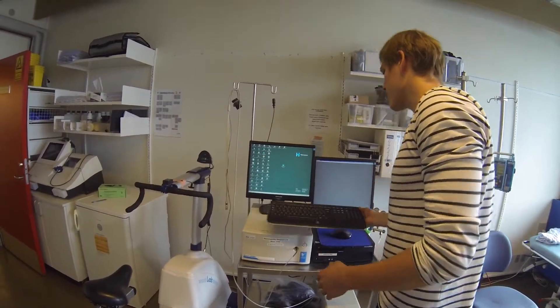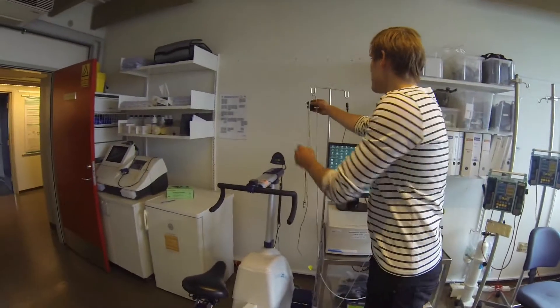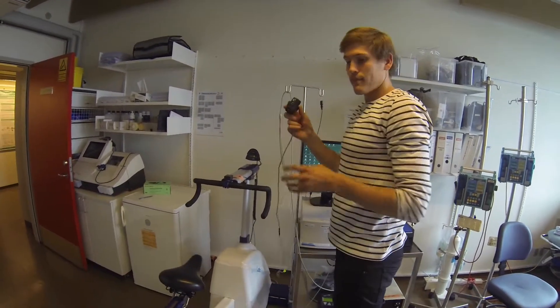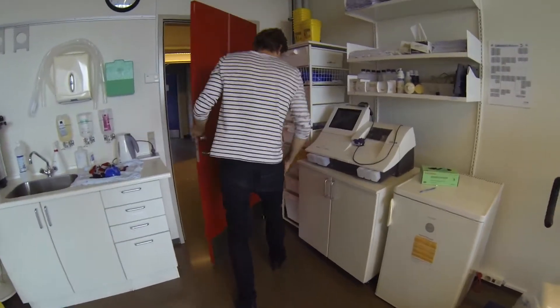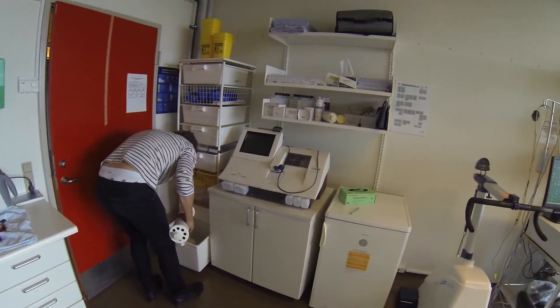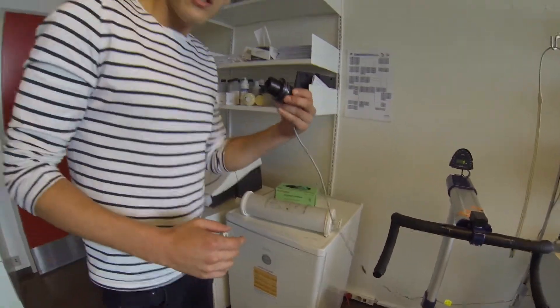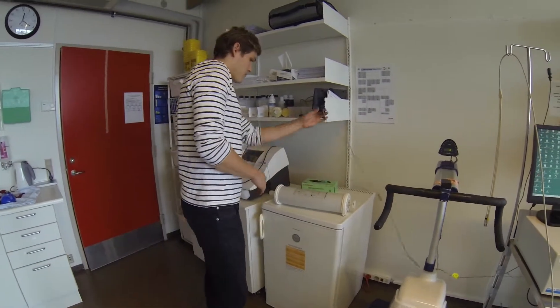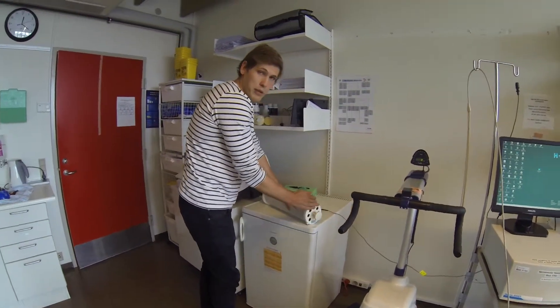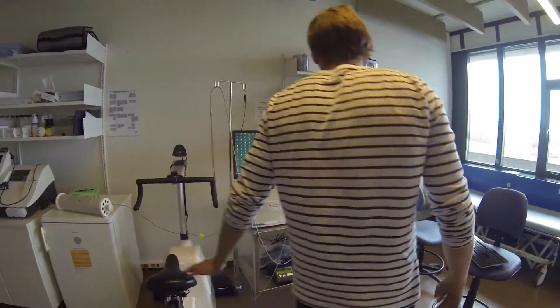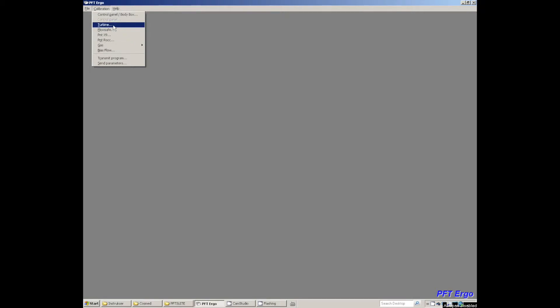Now we are going to do a calibration of the volume on the flow meter, which is this one. We are going to do that with a calibration syringe. This indicates the way that you should breathe into it, which also applies for the calibration. Put it in here, make sure that it starts with being pushed all the way in. Then we go back to the software program, press File, Calibration, then we do turbine calibration.